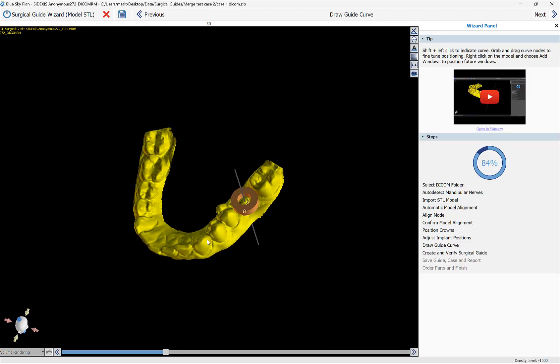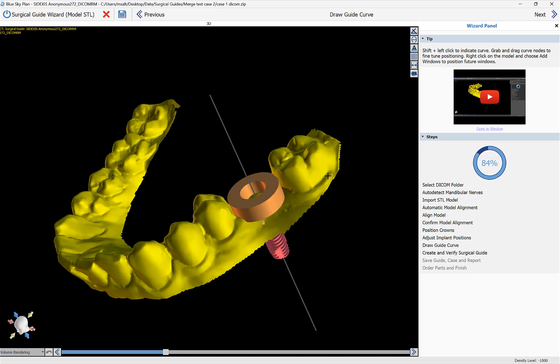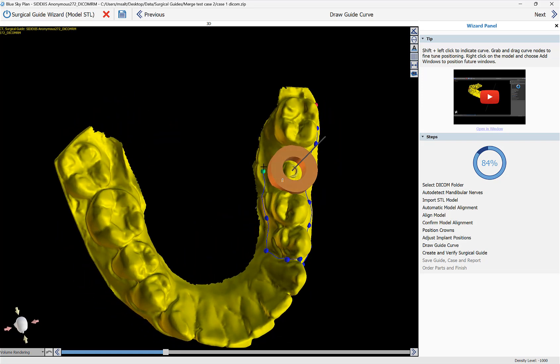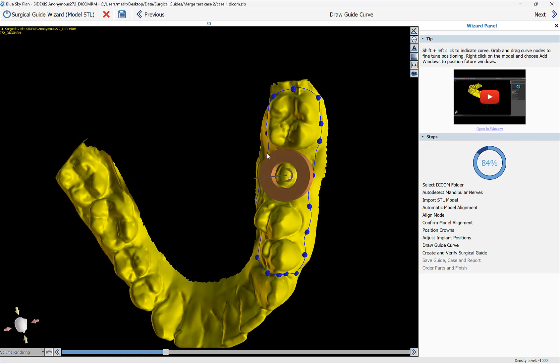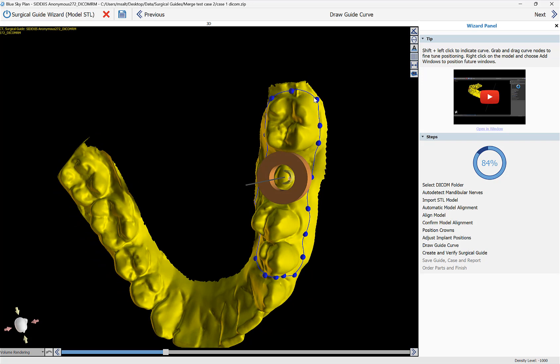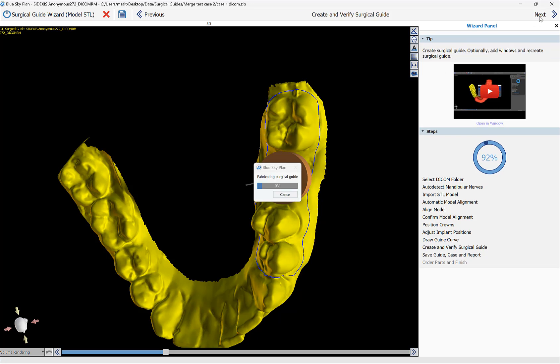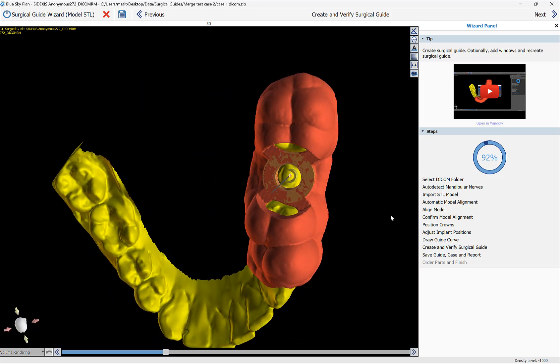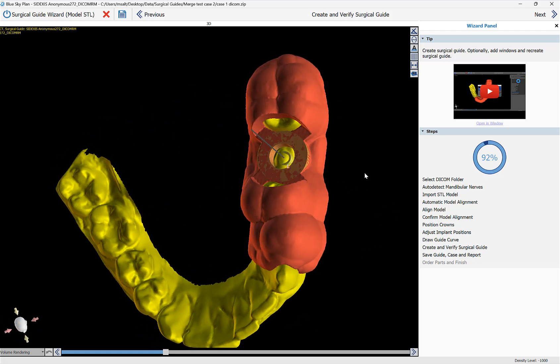We can now see the model with the software guide tube — the brown circle — which represents the exact positioning of the hole in the surgical guide. I'm now drawing the surgical guide curve by holding down the Shift key and left-clicking as I define the relevant area. We go all the way around back to the start position and it closes automatically, or you can grab and drag the green dot into the red dot to close the curve. Once done, click Next. The software fabricates the surgical guide — we can see the hole is in the exact position of the guide tube, with the vertical axis of the implant going directly through the middle.